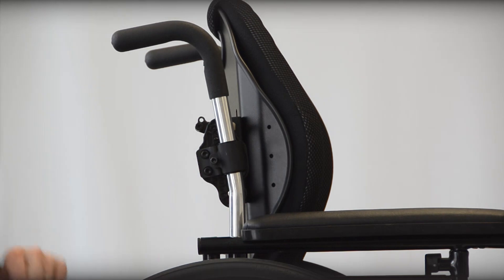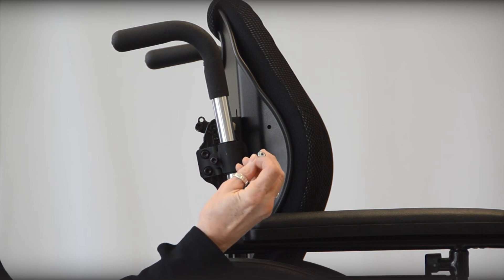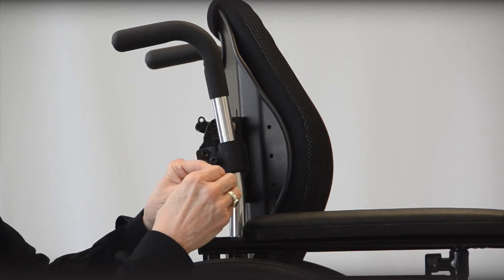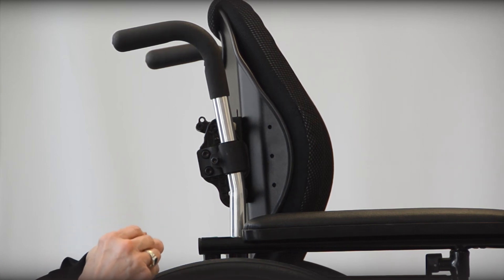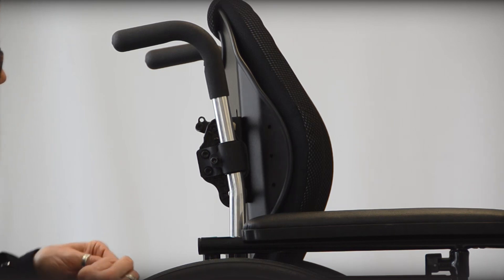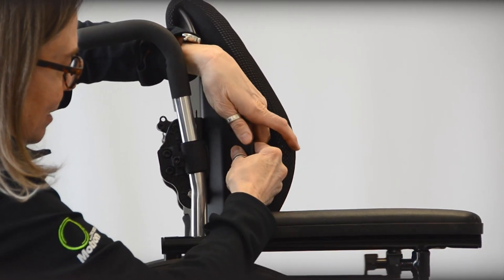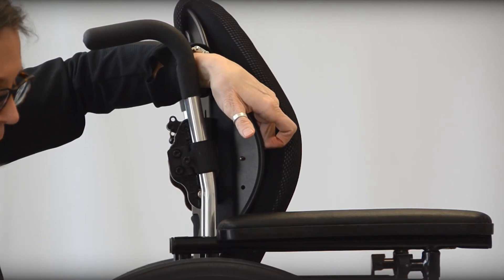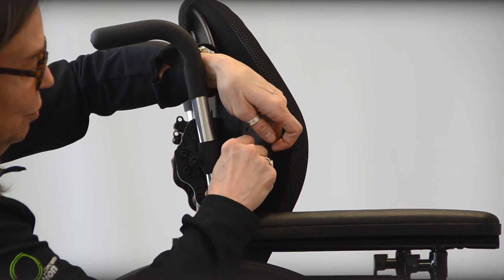This will give you a little bit of height variation. The Posture Flex comes with a small pair of little silver button binder screws. I'm going to assemble this and mount it. I'm going to remove the binder screw from the little black anodized backing and place the screw in from the inside of the shell at whatever height I want — let's use this middle attachment site. Now line this up, and then over that I'm going to be placing the anodized washer, and then the silver binder screw goes on top of that.